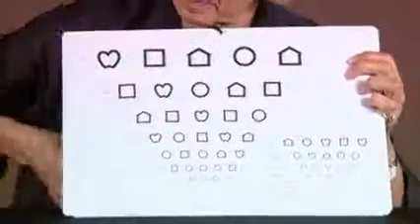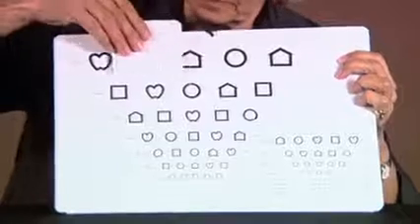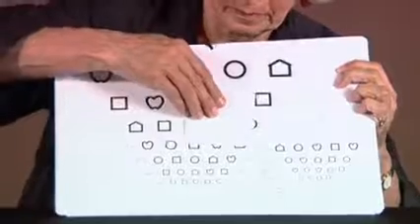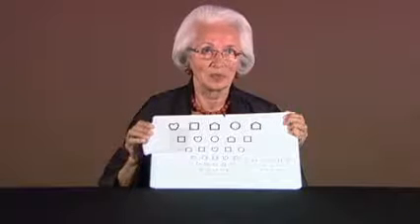We measure down to the threshold size. Here we have one part of the test where the symbols are still smaller. So rather quickly we can measure very low visual acuity values and find the threshold for people who have impaired vision.